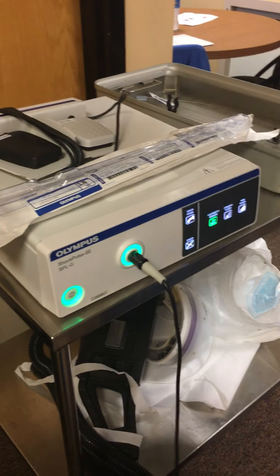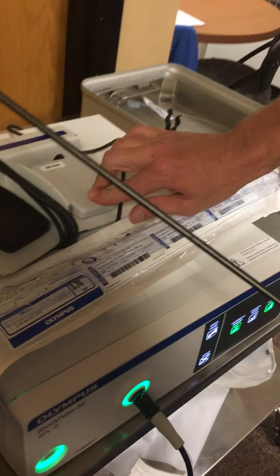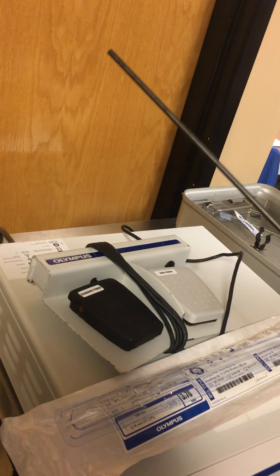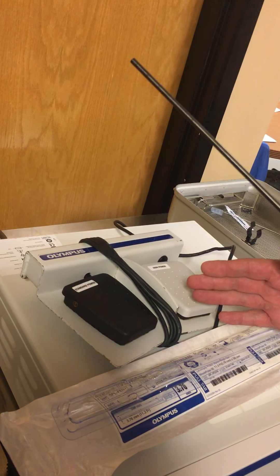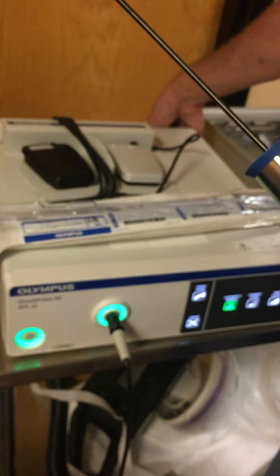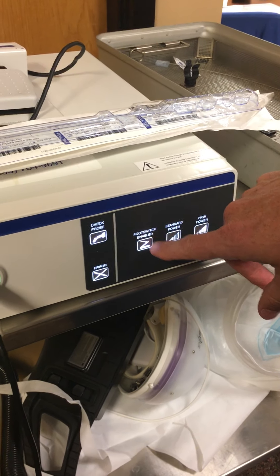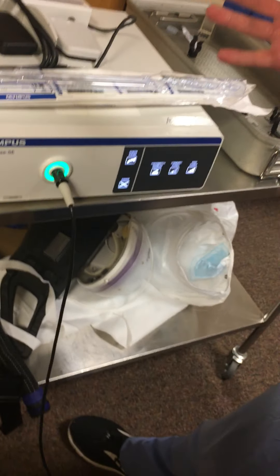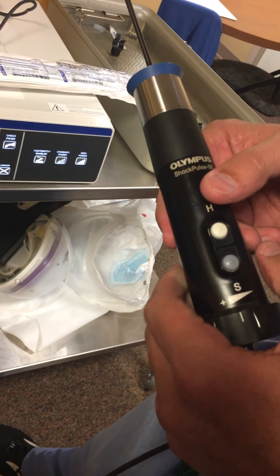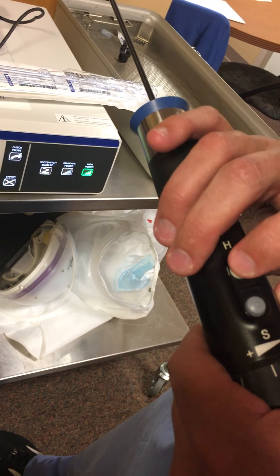Get positioned on the stone. Right now the system is set up to use the foot switch — press activate for high power or standard power. You can also activate it from the handpiece. To switch to handpiece activation, unplug the foot switch from the rear — it's firm so it takes a little effort. Once unplugged, the green indicator for the foot switch will no longer illuminate. Some physicians prefer the foot switch, some prefer the handpiece, so it gives you the option for both.